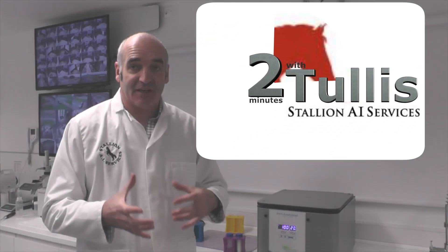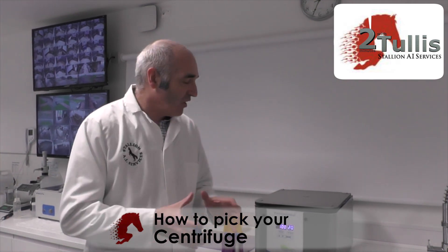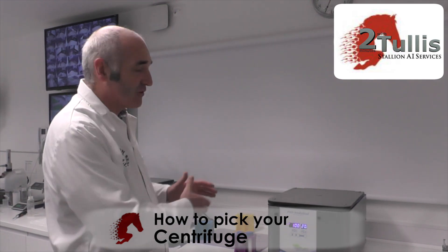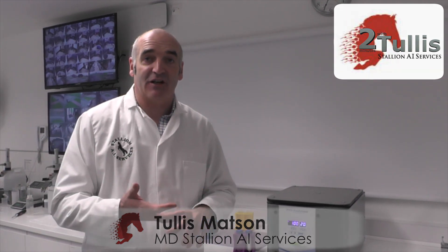In this session we're going to talk about centrifugation, and it's quite important how you pick your centrifuge. There are lots of different models out there, and we've got to find out what model suits when we're centrifuging equine semen. Equine semen plays an important part — whether you're doing fresh or chilled, most stallion semen does need to be centrifuged at some point, so picking the right centrifuge is important.